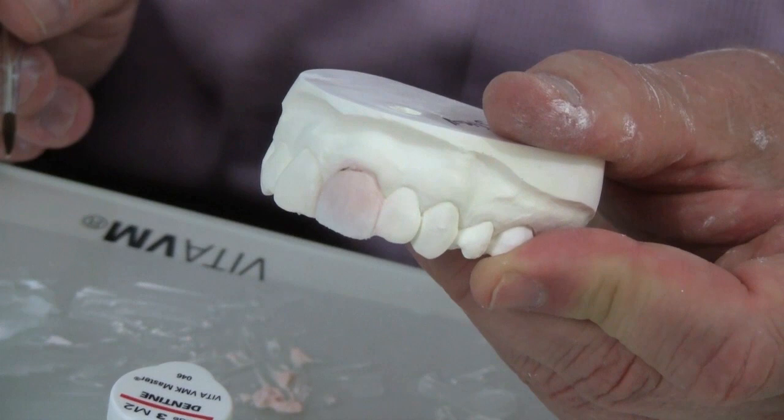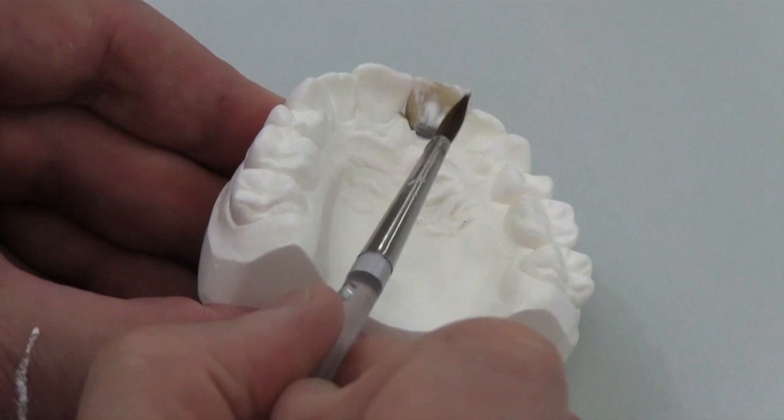Enamel build-up: very fast, very productive, very easy with enamel.